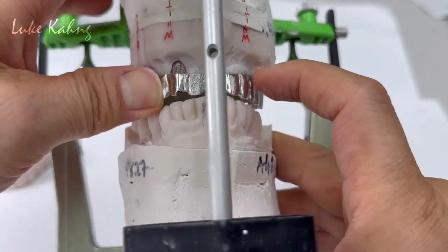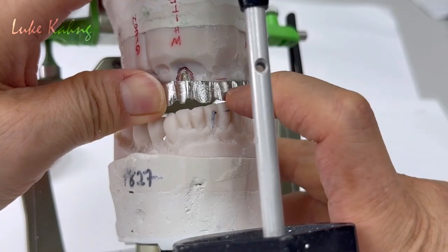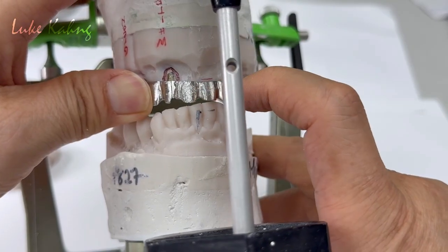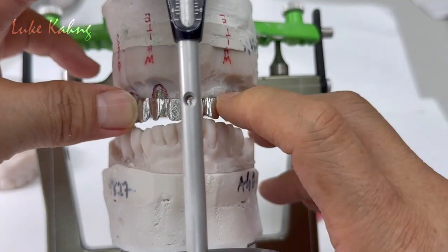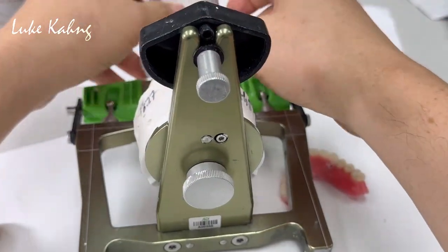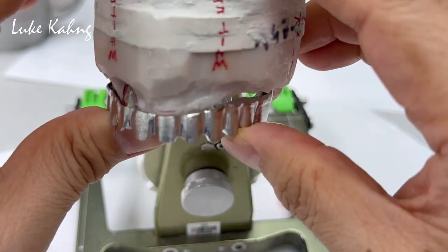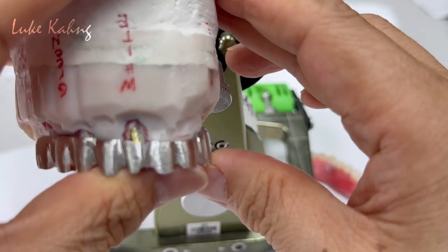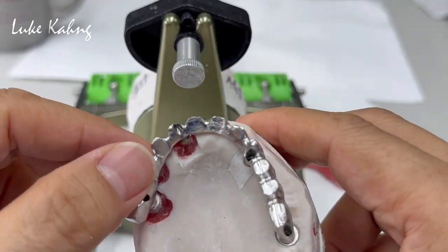Horizontally — and trying to draw this line as the tissue line. I'm trying to evaluate: probably FP1 is better for this one from the anterior, because that was too long. Check the bite, make sure it's okay, and underneath — get the room. Change the angle screw channel here — anyways, very complicated.